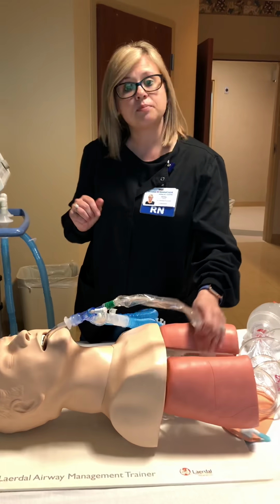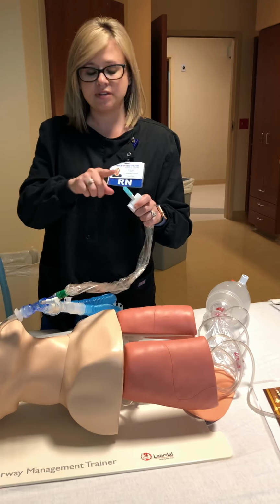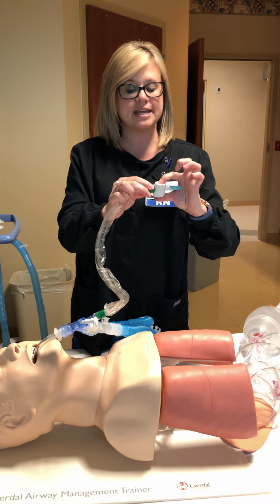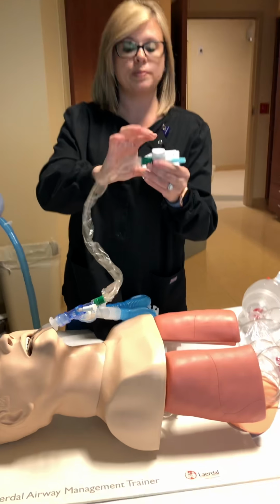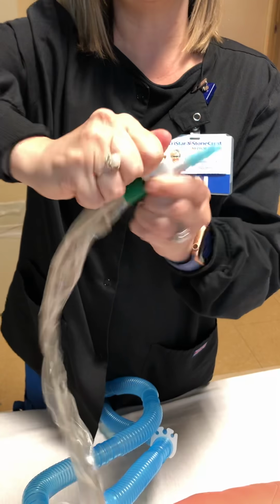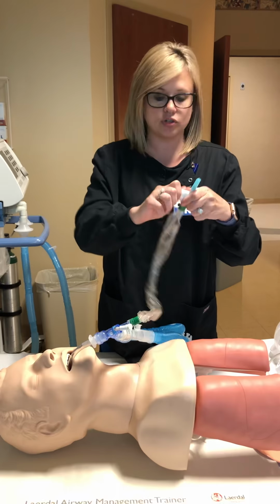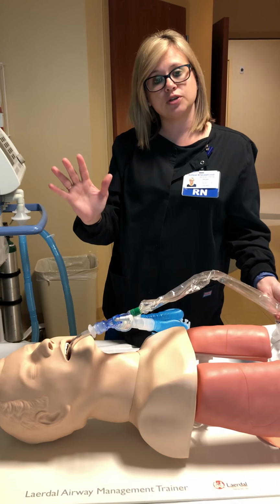So while that's giving the breath, go ahead and look at your inline suction, okay? You should have suction tubing going up to a suction canister. And here is where you'll press down to do the suction. Sometimes you'll see the suction turn that way, or it will be locked and you cannot press the button down, okay? So go ahead and ensure that it is able to press. Okay, you don't want to start suctioning the patient, get the catheter in, and then you're trying to figure out what's going on.